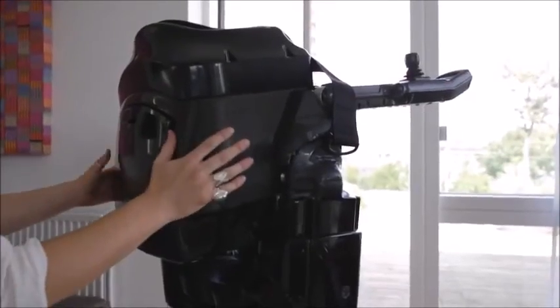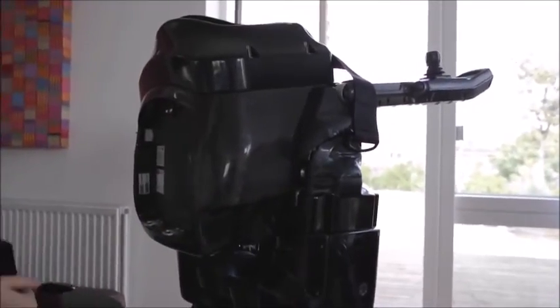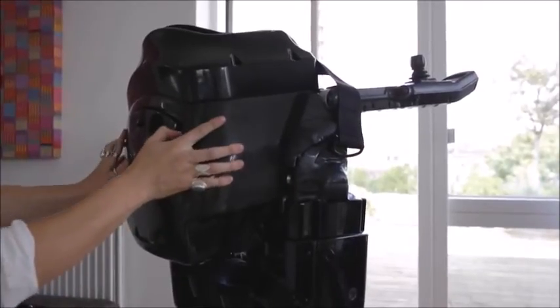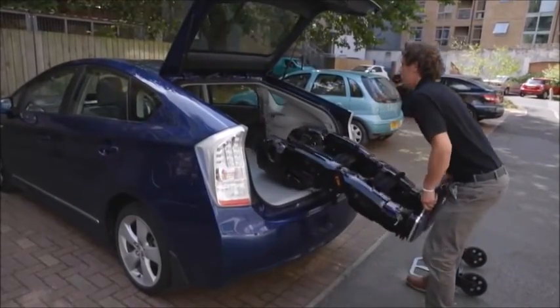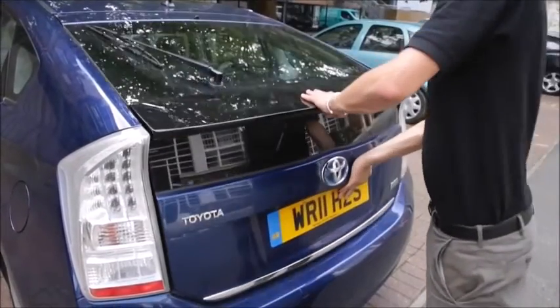Each Rex comes with two batteries that can last for two hours of continuous walking and use no charge while stationary. The batteries are very easy to change — it only takes a few seconds. They can be fully recharged in one to two hours, so you should never be without power for Rex. Rex is also very portable. It is easily placed in a vehicle, either lying down flat in the back or with the knees bent in the back seat.